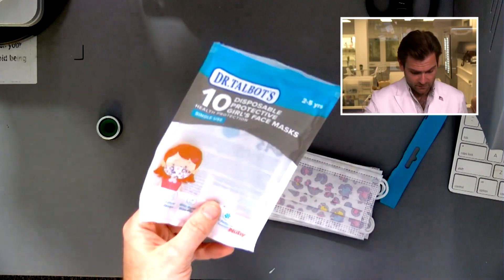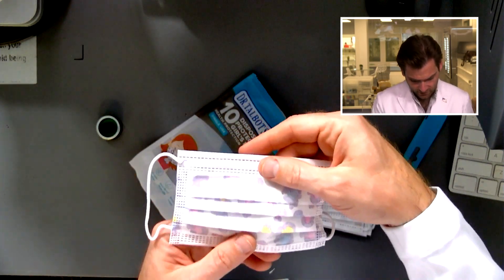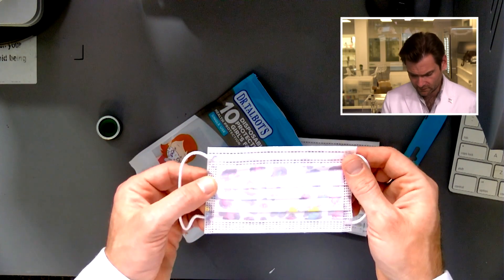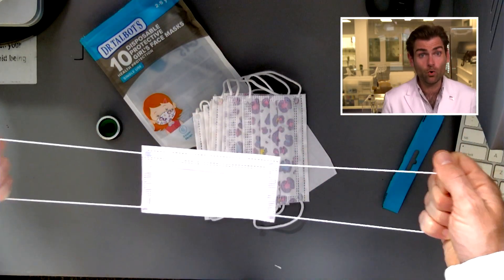Let's look at this. I like the packaging — I like that nice little packaging, and I like that you can see the window so you can see what the pattern is. What is that — pink blobs? Pink blobbies? What's it supposed to be? This is like a TV show I'm not aware of. Weird fabric.